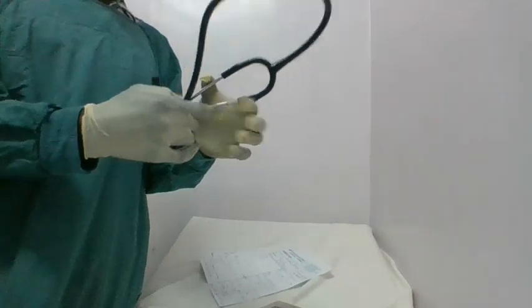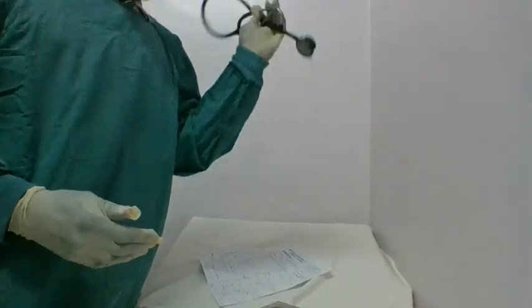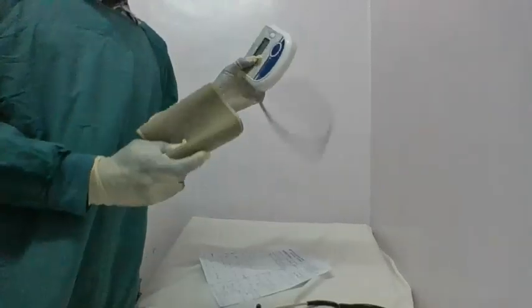So what are we talking about, the vitals? What are the common vitals? The common vitals you know very well are the blood pressure of the patient. You need to take the temperature readings of the patient. You need to take even the auscultation. Now you need to look at the breathing pattern. What's the breathing pattern? You need to auscultate that patient of yours to know very well how the breathing rhythm is, even to assess the respiration, guys, you will need the stethoscope. So guys, the very crucial equipment that you need in proper vital taking is the blood pressure machine.